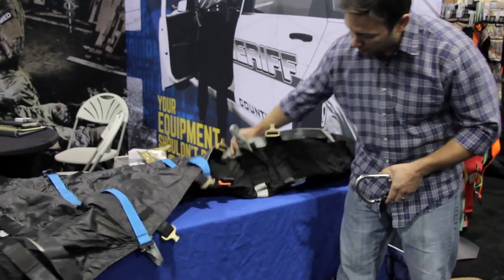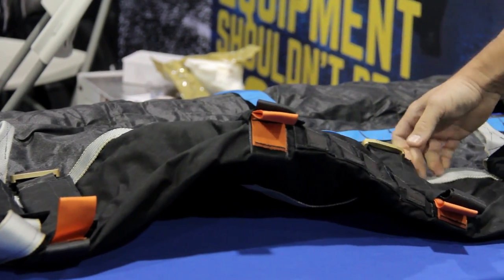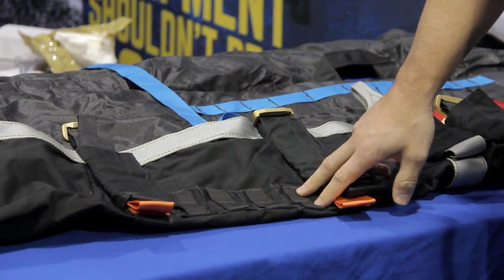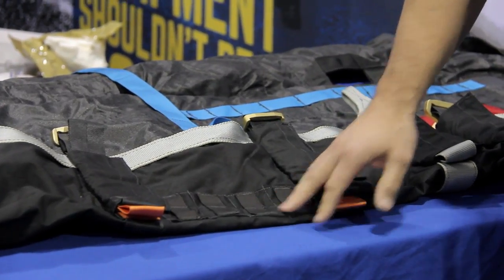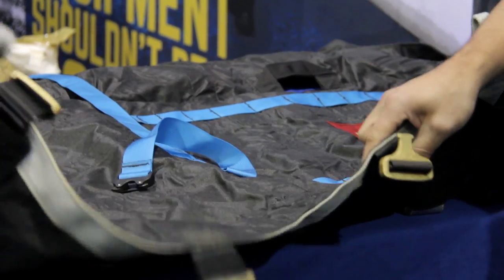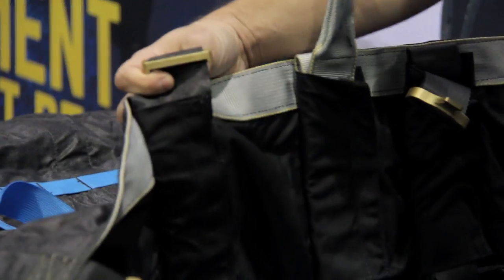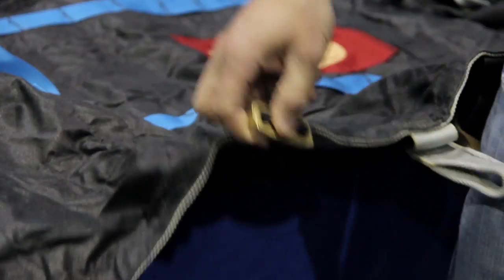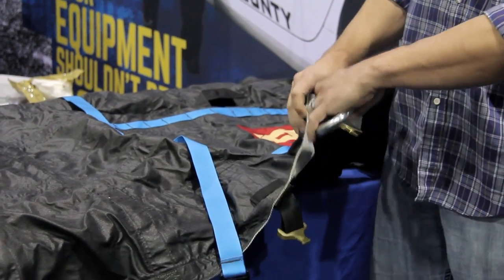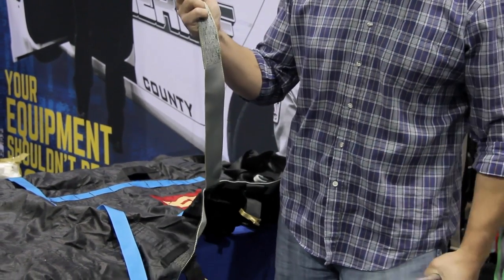The orange pieces are for tagline only, not to be confused with anything else — that's why they're orange. You'll also notice a MOLLE panel here for the option of add-on flotation; it simply MOLLEs on for maritime missions. Black two-inch gold cobra buckles secure the system around the casualty in a variety of configurations. Everything silver is life-rated to draw out and hoist the casualty when you're ready to rig — the silver hardware here is for the horizontal configuration.